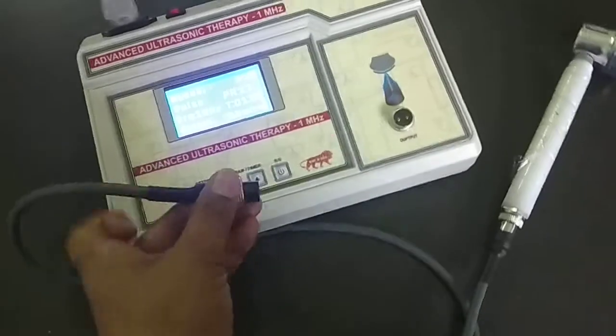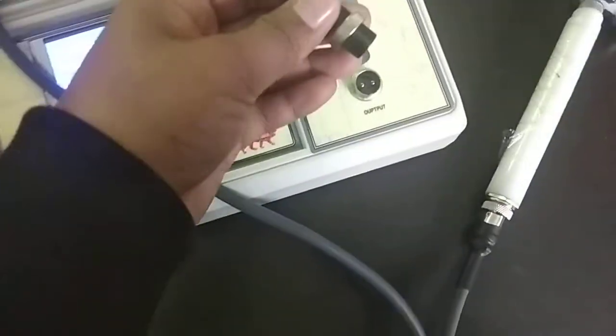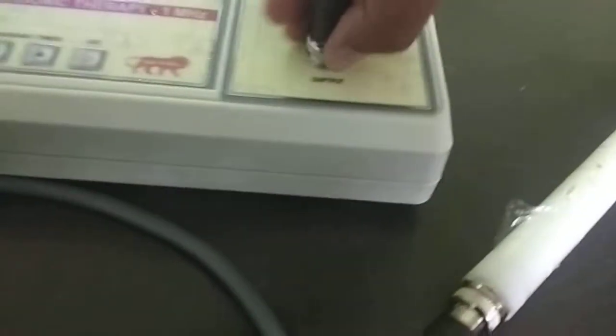This is the Output cable. You have to plug the Output cable in here, like this.